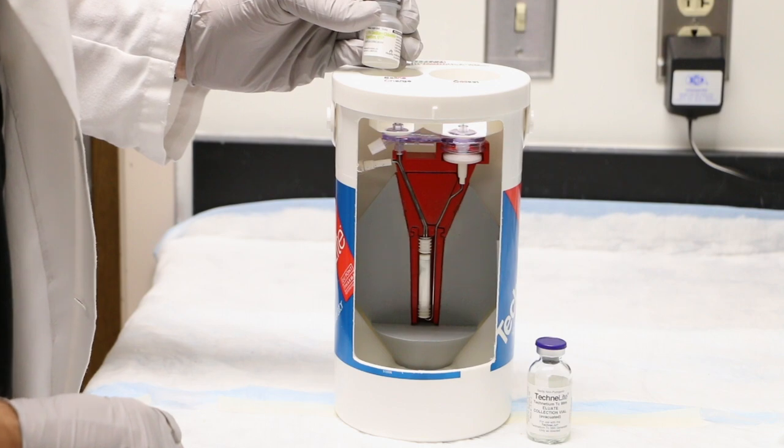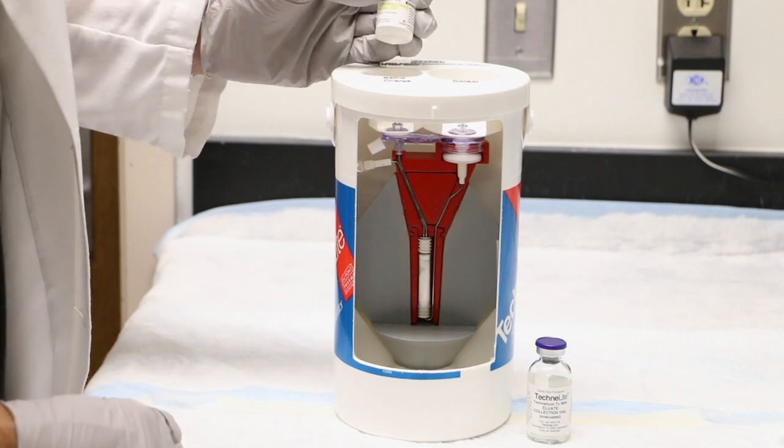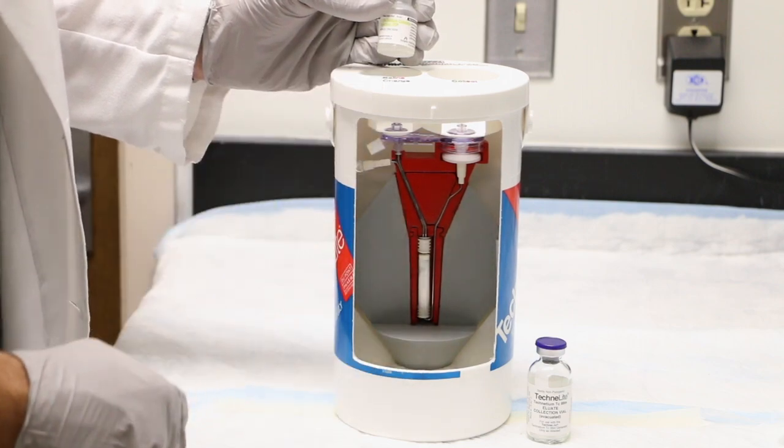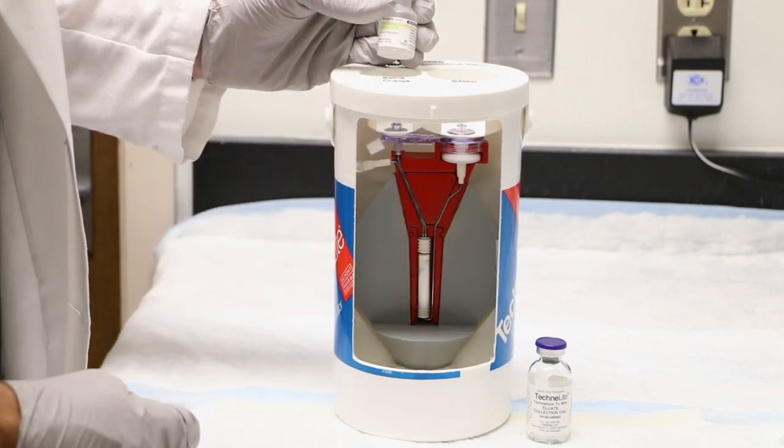The process takes about five minutes, and in the end, no saline is left on the column. All of the saline is pulled through the vial, and that's the way the system is designed to operate.